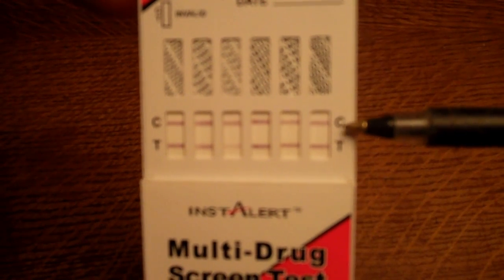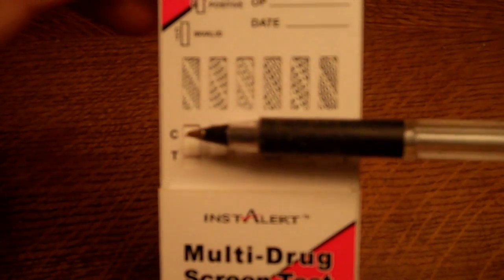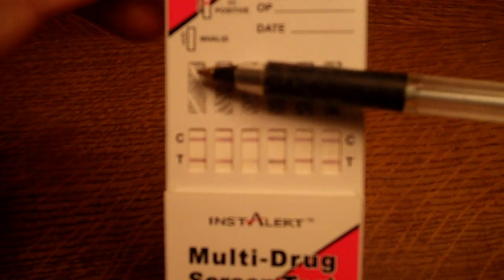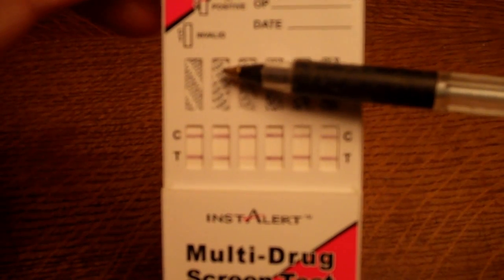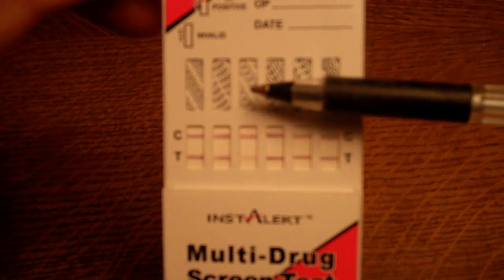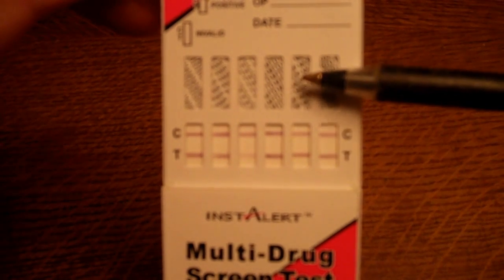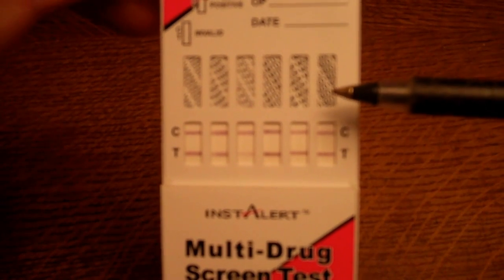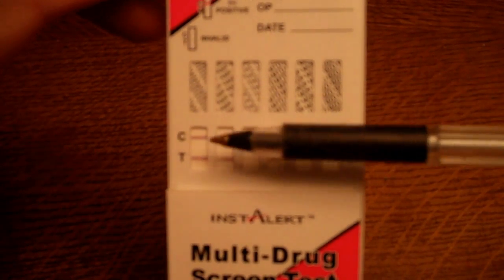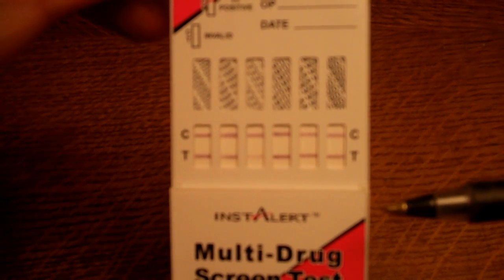Here you've got a COC membrane for cocaine, NAMP for amphetamine, THC for cannabis, MTD for methadone, MOP for opiates, and BZO for benzodiazepines — clear control lines right the way across.